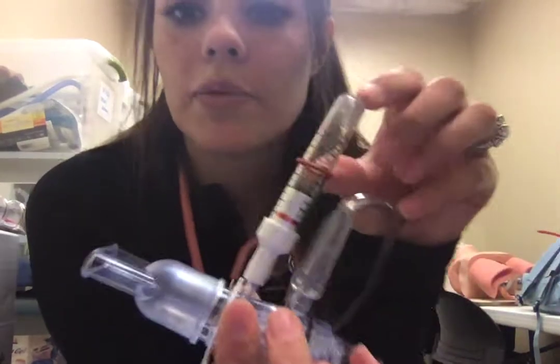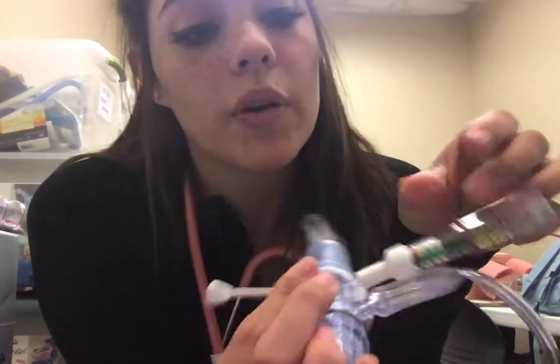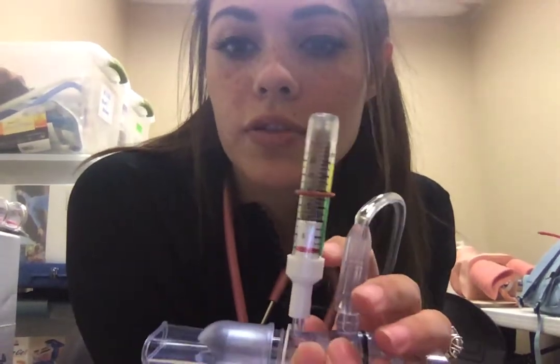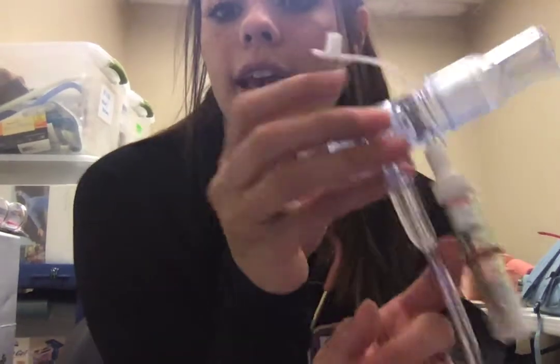It comes with this little rubber band, and I'm going to set that at 20 centimeters of water pressure. That's going to help the patient visualize where their goal is. When they exhale forcefully, they're going to want this red line that you see to float up, and they want to get it as close to that 20 as they can.